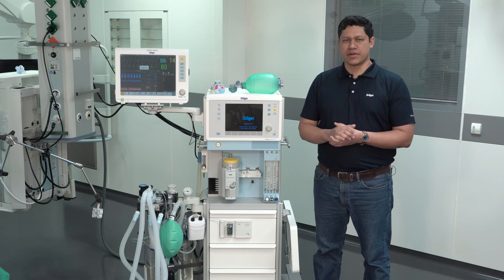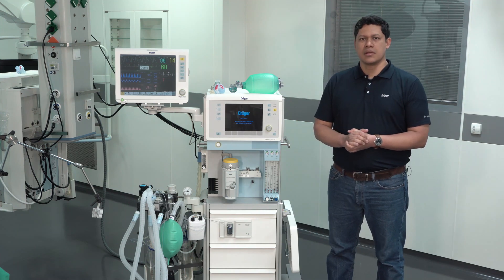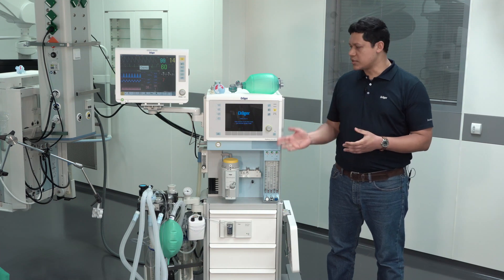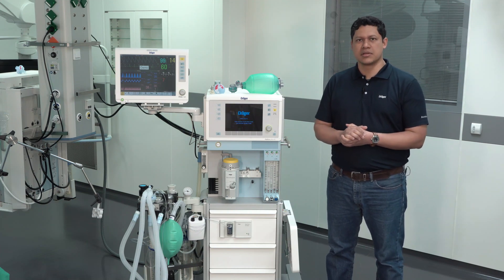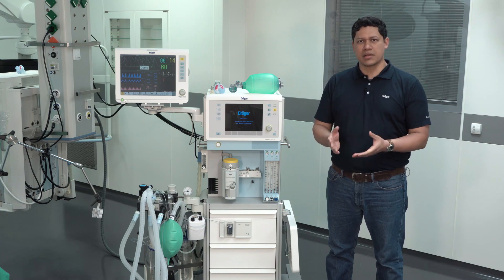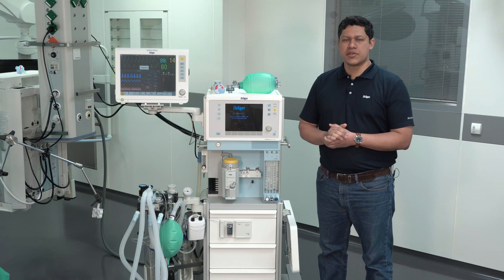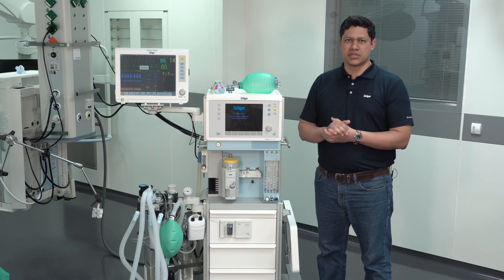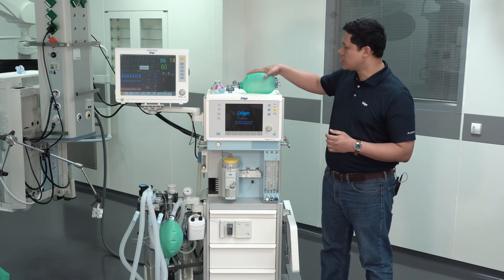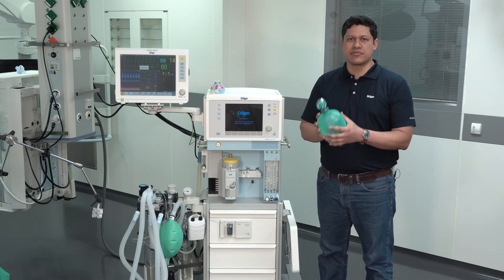In the case of an emergency, please call for help at an early stage. Before connecting the patient, verify the readiness of the systems and accessories. More details on how to do that will be explained later in this video. Make sure that an emergency resuscitator is always at hand, to ensure ventilation is secure for the patient in the case of an emergency.